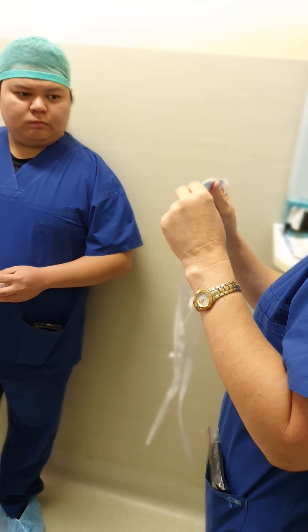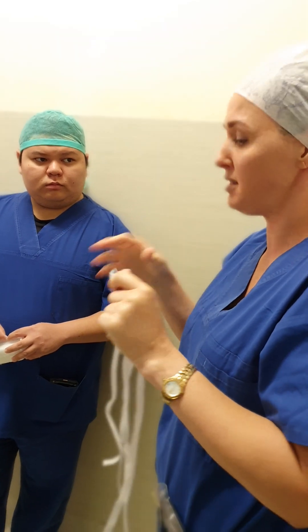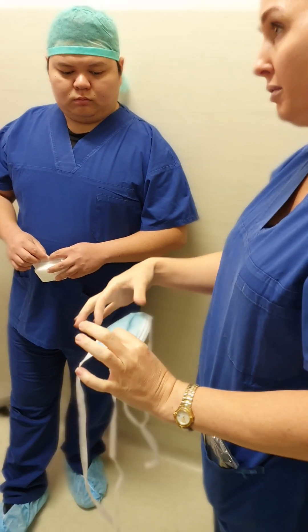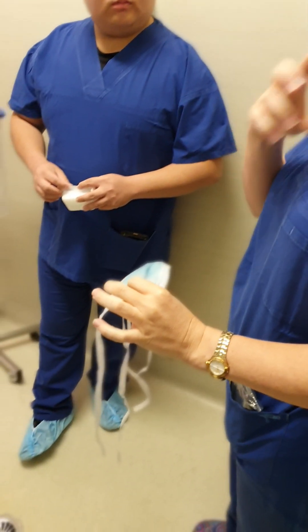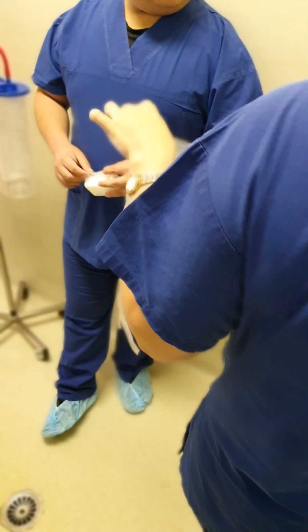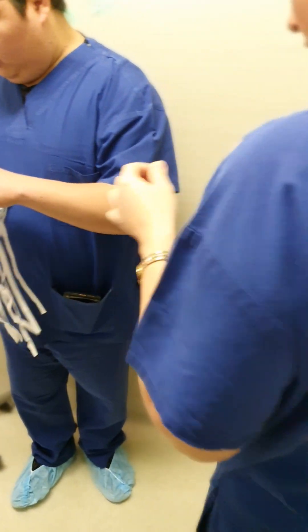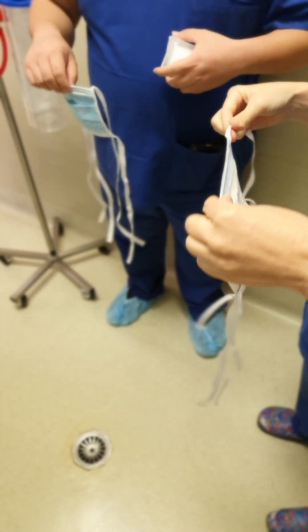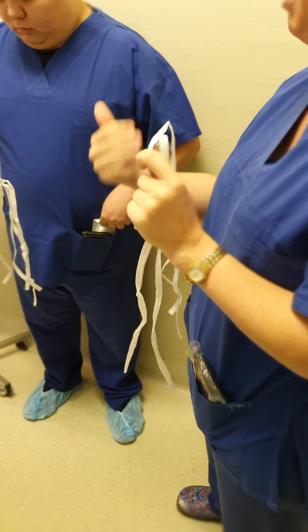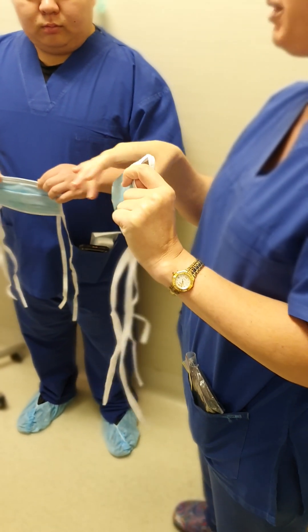Do you know how to fit the masks? Have you been going through that at all? These aren't going to seal like an N95 mask — these are just generally going to protect you from splashes and things. So take it out. Try not to touch this section because this is your filter. These are all disposable, they're one use. Once you've finished using it, you take it off and you throw it in the bin — you don't pull it down. The reason being, the more you touch here, the oils and dirt on your fingers actually contaminate and start to make the filters non-usable. It fills them up. Because they're such a fine micron filter, it actually fills them up and so it becomes ineffective.